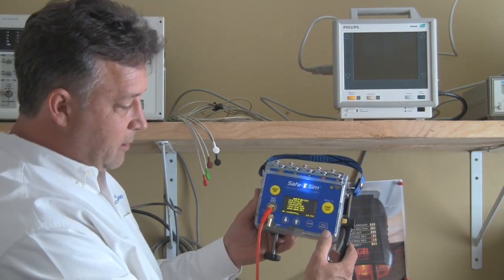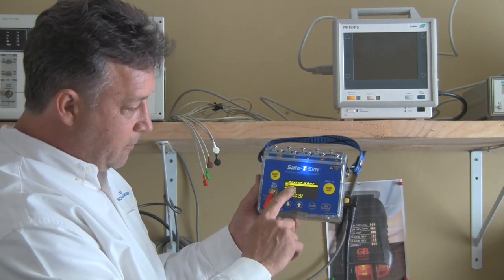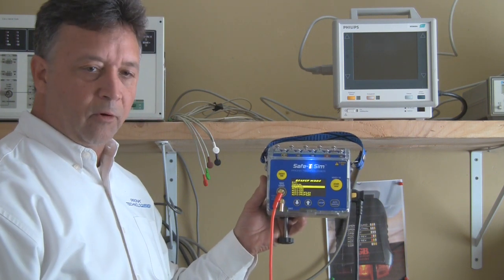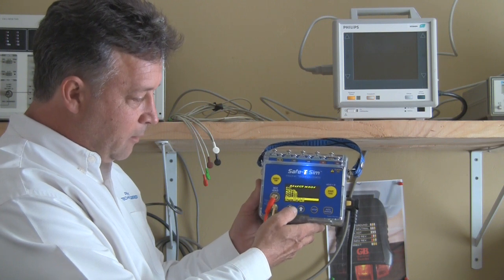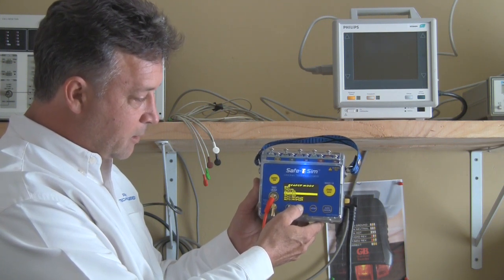If I hit the auto/manual button you'll see what I mean. You can select the mode from this screen. You've got manual mode which is very straightforward, and then you've got up to five automated profiles that you can define. Once you've set those up you don't have to touch them again — they'll be there for you when you need them.